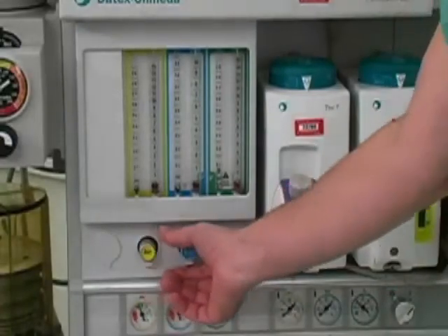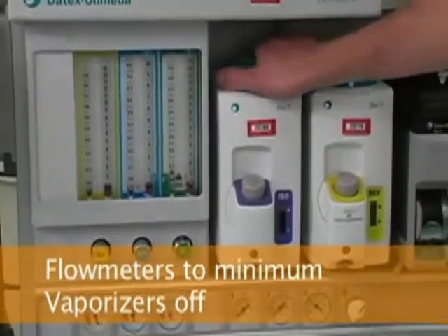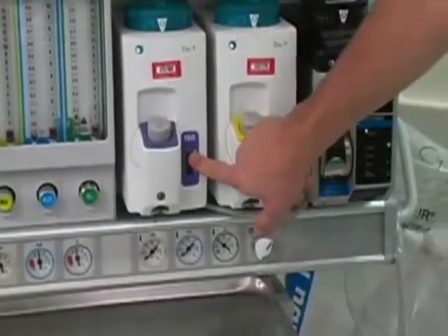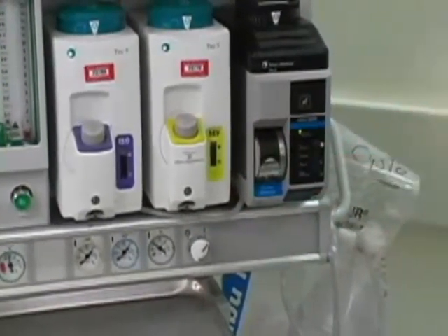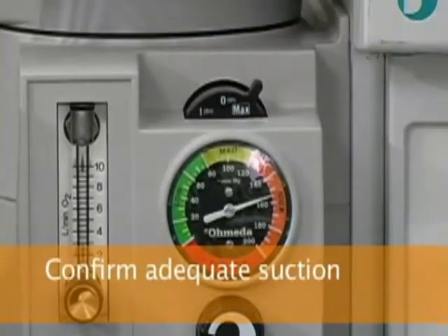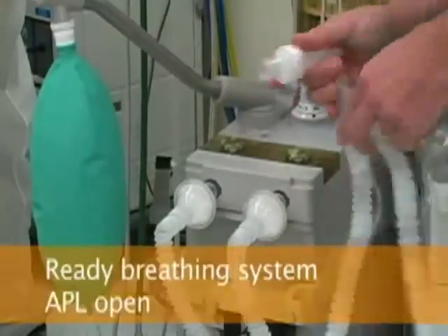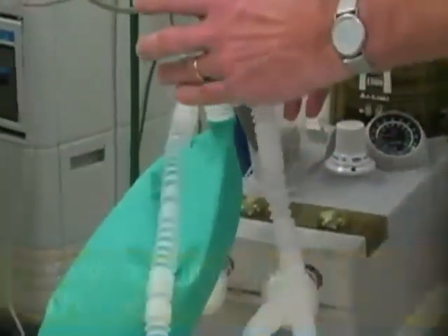Verify that all flow meters are set to minimum flows and that all vaporizers are off. Check that vaporizer filler caps are closed and the vaporizers are filled. Confirm adequate suction and then clamp the suction tubing. Check that the breathing system is complete and ready for the next patient. Check that the ventilator switch is in the bag position and that the APL valve is open.